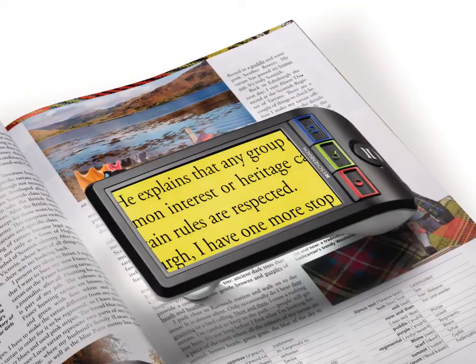In addition to the reverse contrast mode, several colour options may be available. With the SmartLux Digital, a black on yellow option may be subjectively preferable for a number of patients.